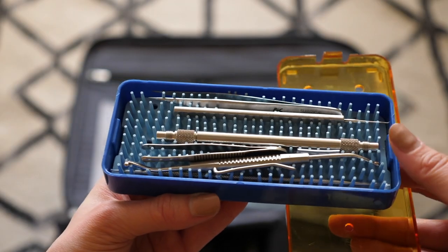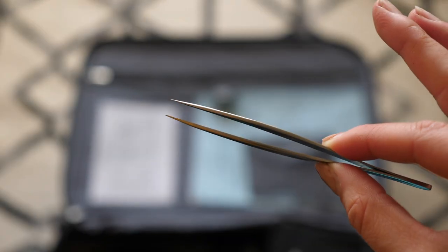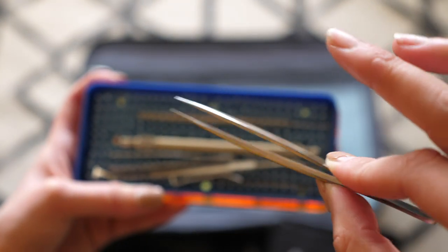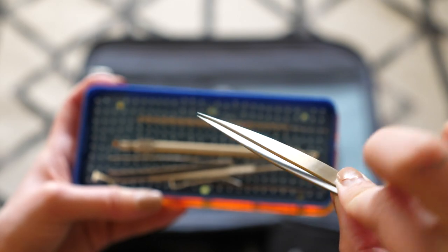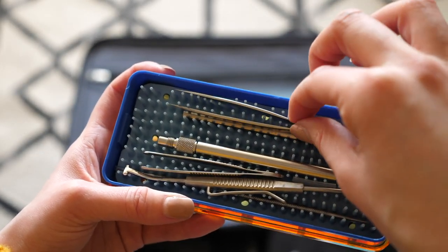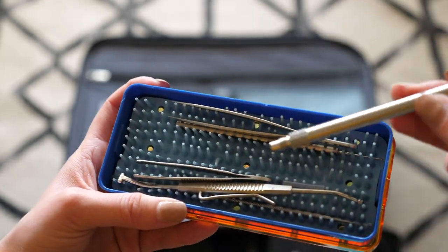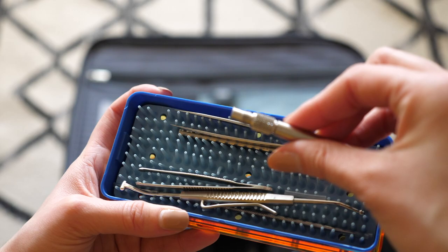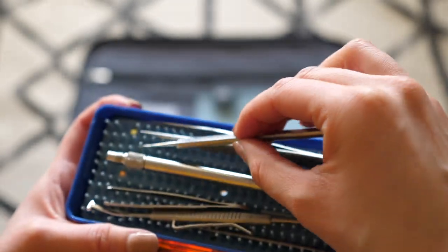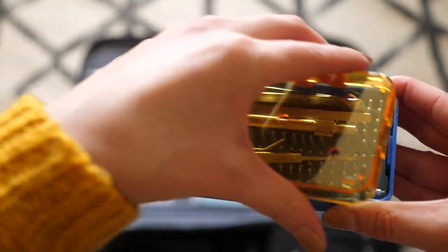This upper compartment is also where I have my foreign body removal kit. I want to take a second to talk about the forceps, because I think the ones that come with the kit are just too sharp. I truncate lashes instead of epilating them, so I do bring a pair of Tweezermans in my foreign body kit. The kit also includes a metal loop for foreign body removals, a metal spud for the same thing, and a handheld scleral depressor, which I would personally use over the thimble design.